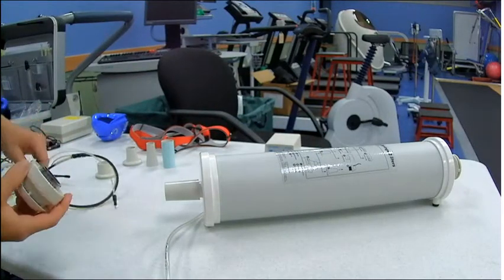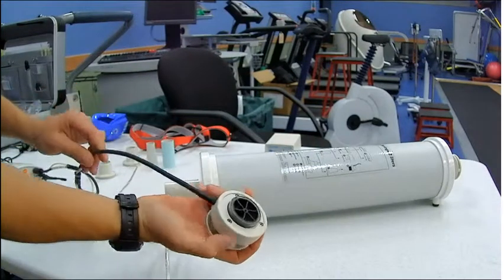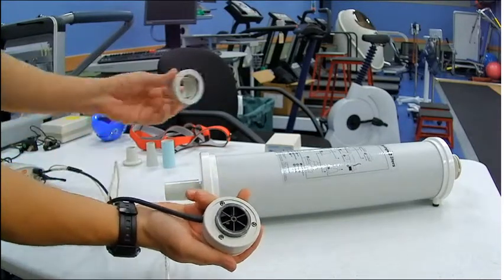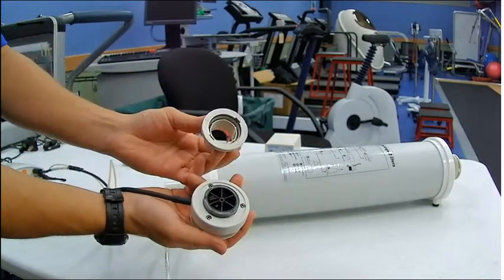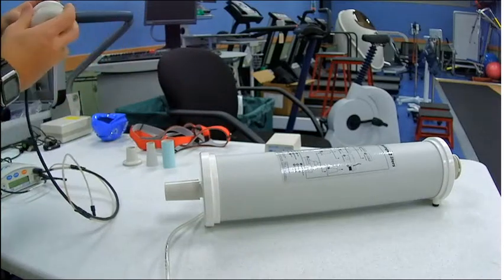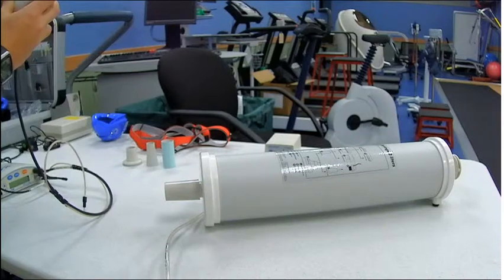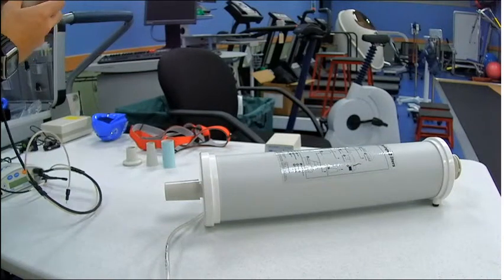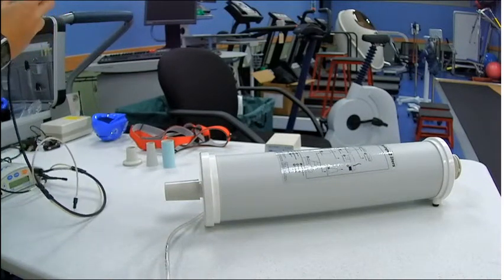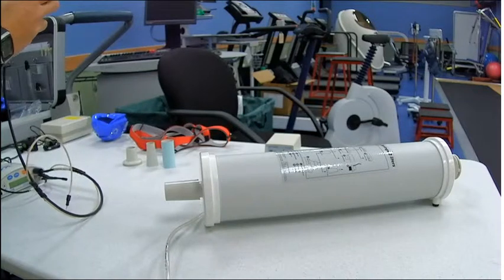Then what we'll do is we'll grab the adapter that's meant for the fan, right here, and we're going to plug it over. And so like I was explaining to you earlier, I didn't leave enough room for the flaps. So you'll see I'll take off the top and push the fan in to give a little bit more room or give.